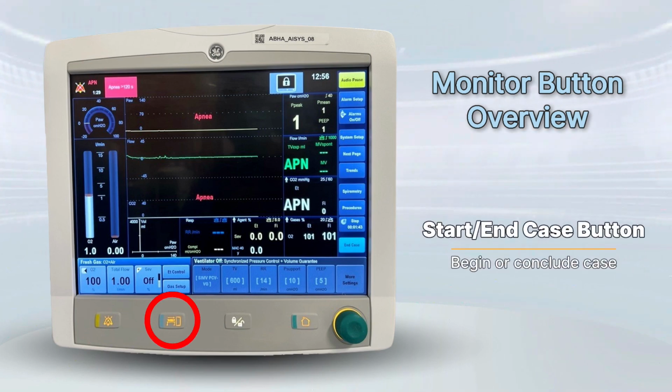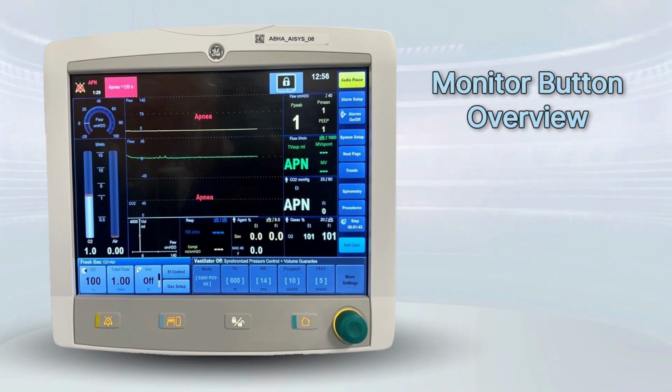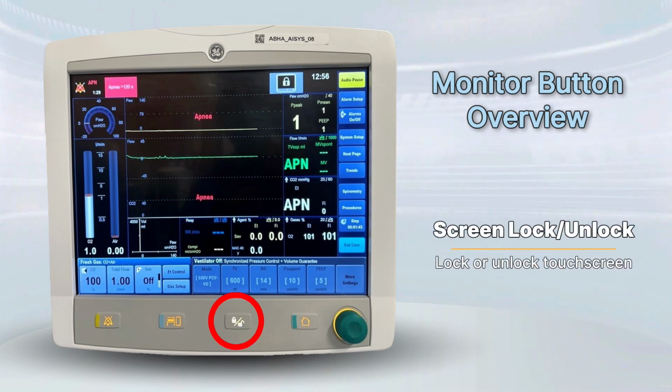Start end case button. Press to start or end a case. It helps document the anesthesia session correctly. Screen lock, unlock button. Locks or unlocks the touch screen to prevent accidental touches. Ideal during cleaning or when no changes are being made.